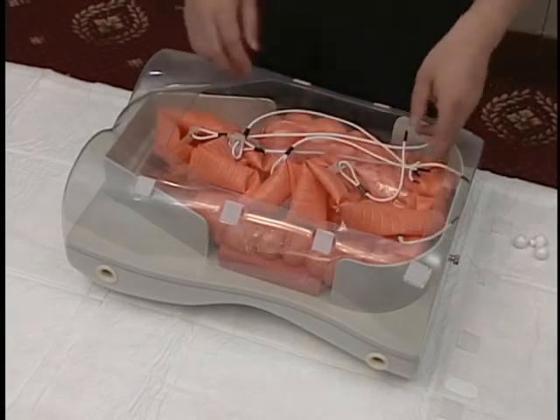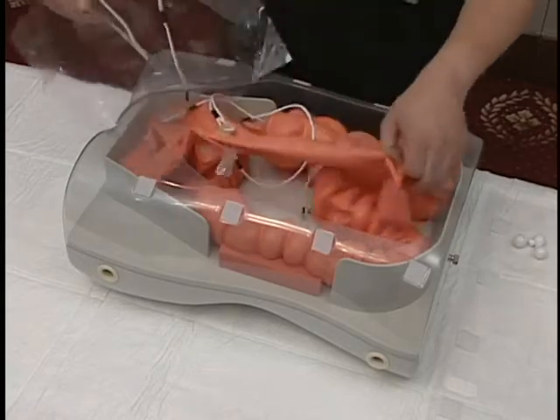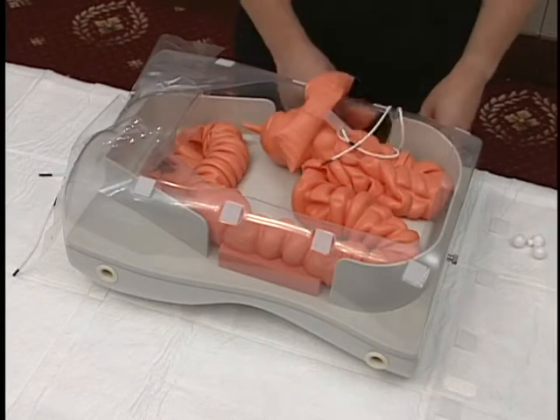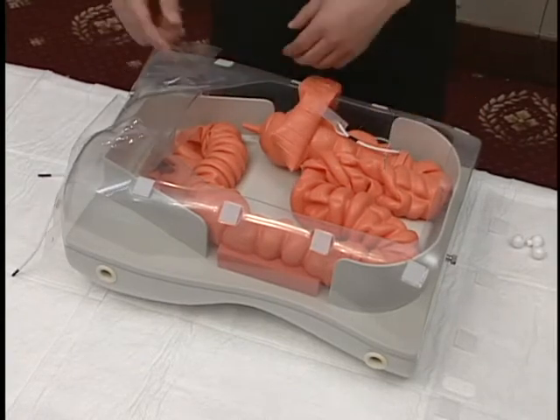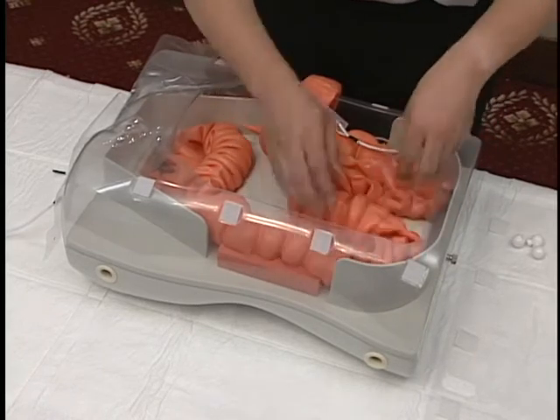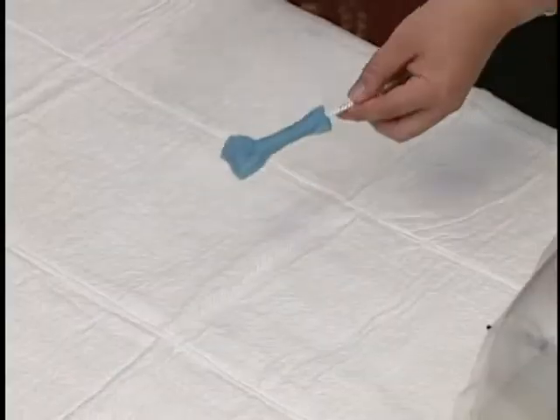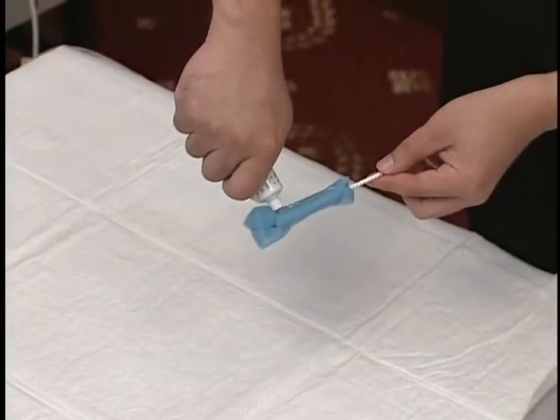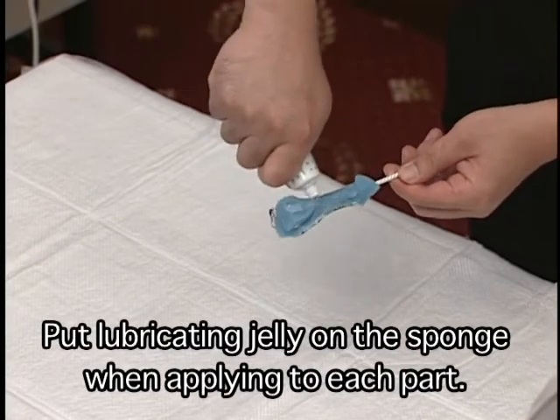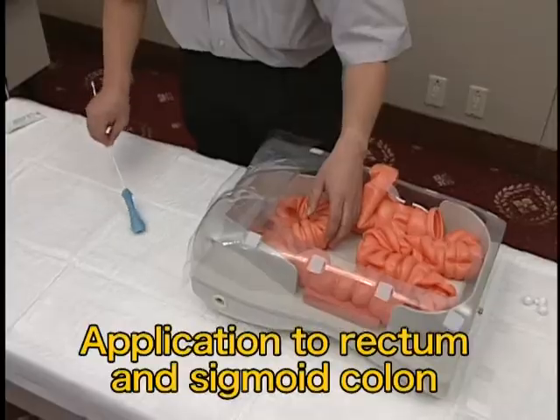Remove the rubber straps from all of the holes in the transparent cover. Pass the small intestine under the hole in the intestine separator sheet. Remove the small intestine from the main body. Detach the connectors of each intestine in three locations. Put lubricating jelly on the sponge provided as an accessory.